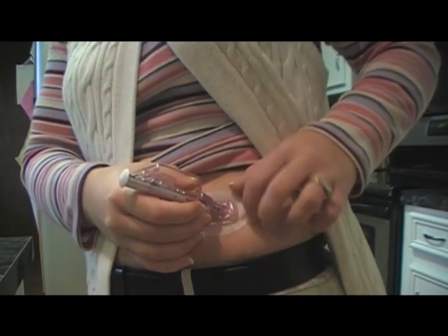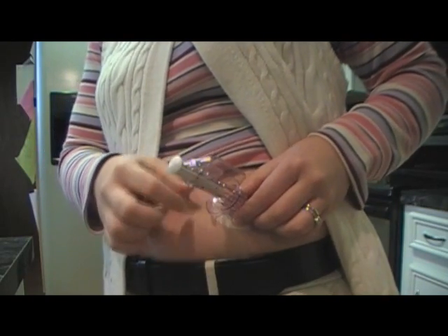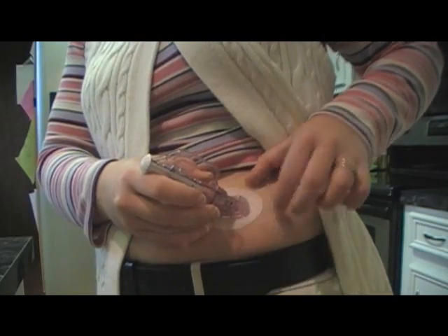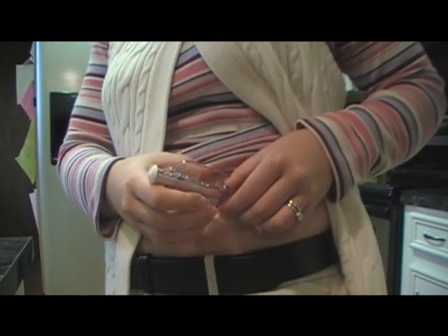You can use Mastisol glue, and then there's also SkinTac. I usually wait till about the middle of the week to put that on, just because it kind of makes the tape hard for me. I don't know if I'm just putting too much on or what.